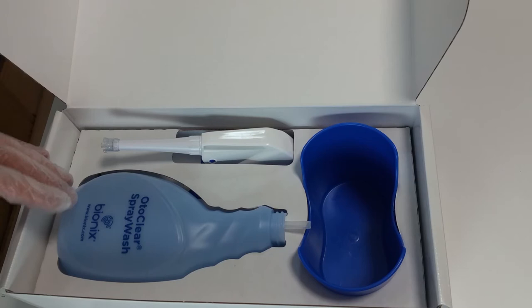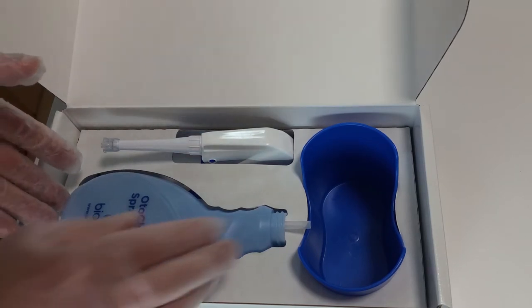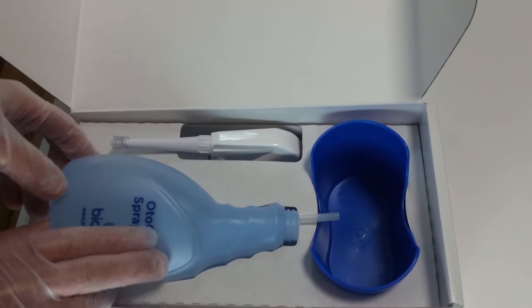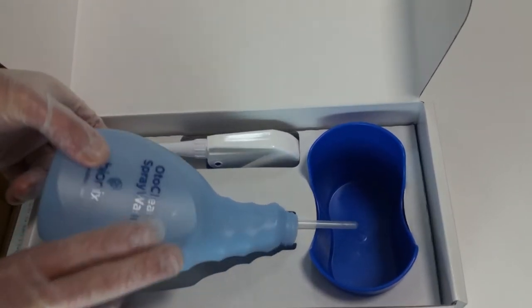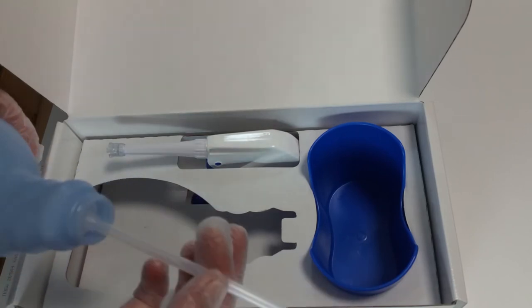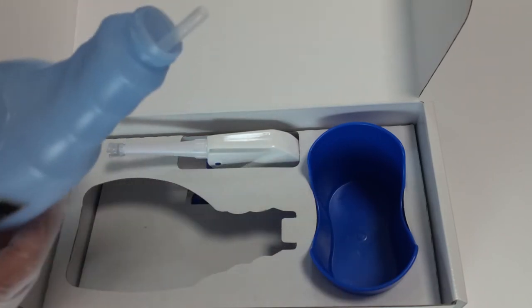If we take this spray wash bottle out, I'll show you something that you can't see. There's the tube for connecting onto the spray wash head.